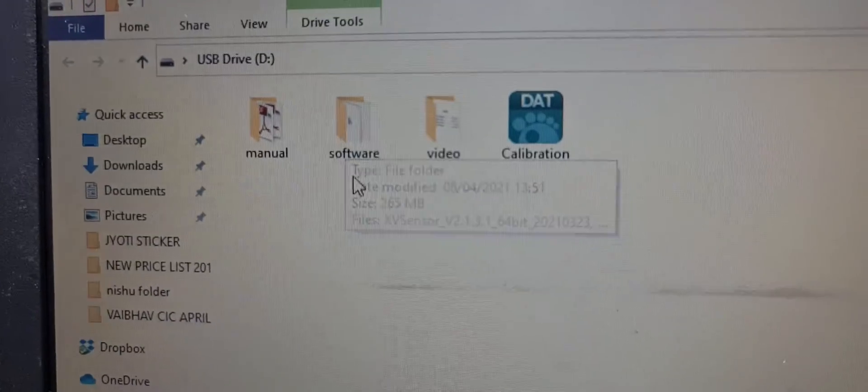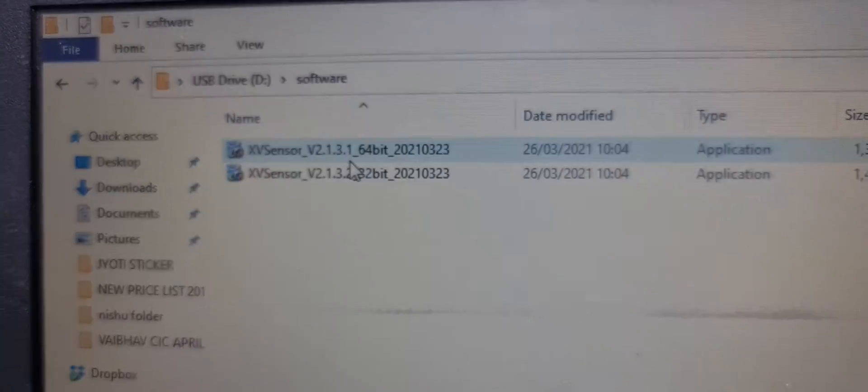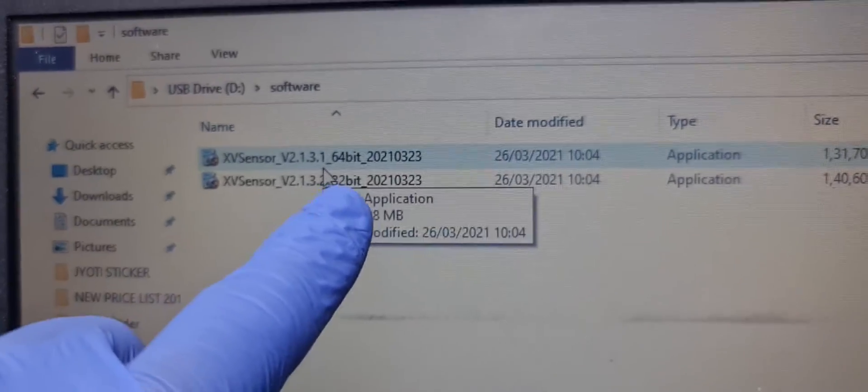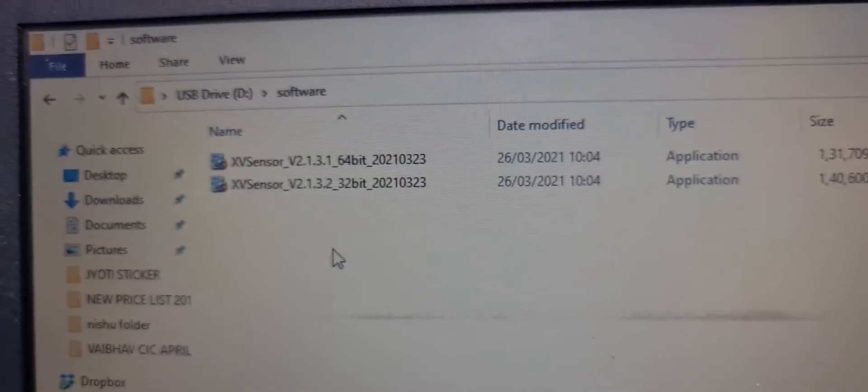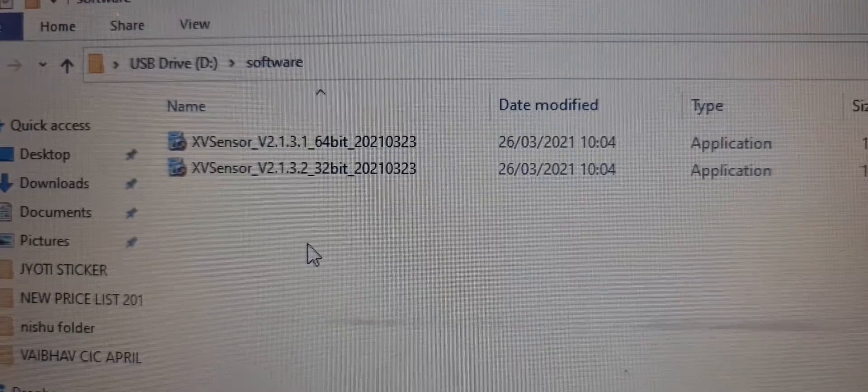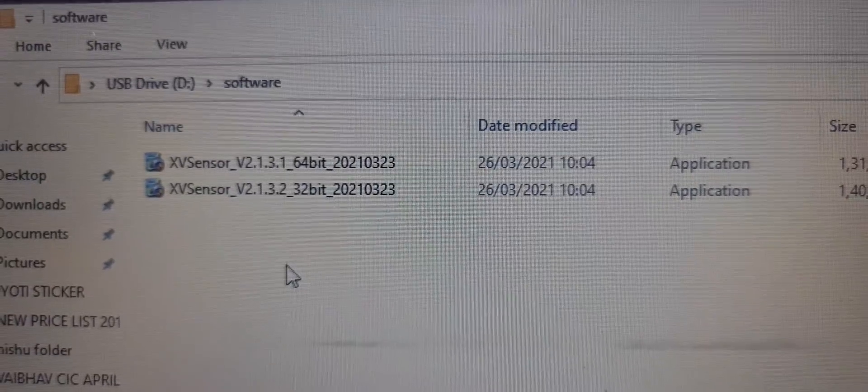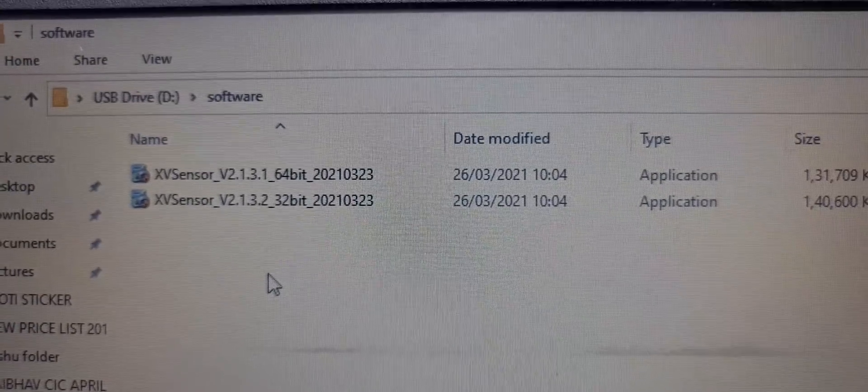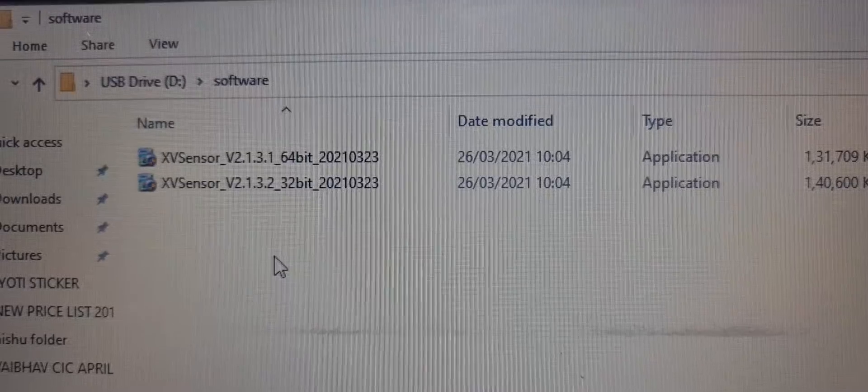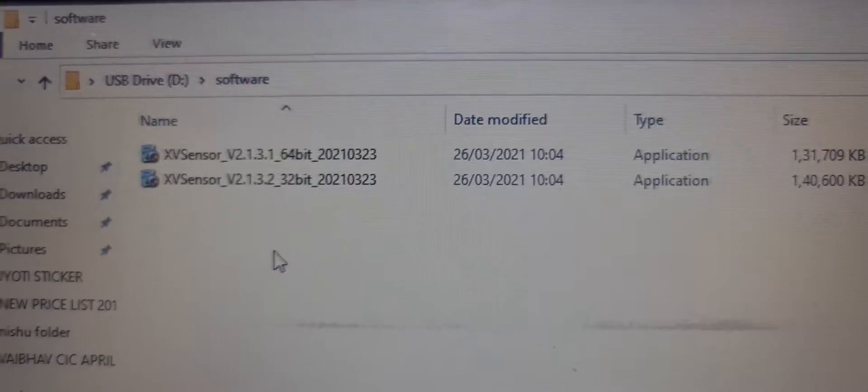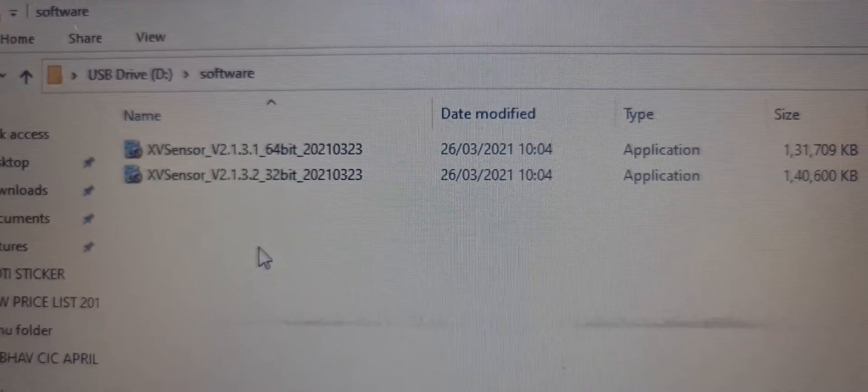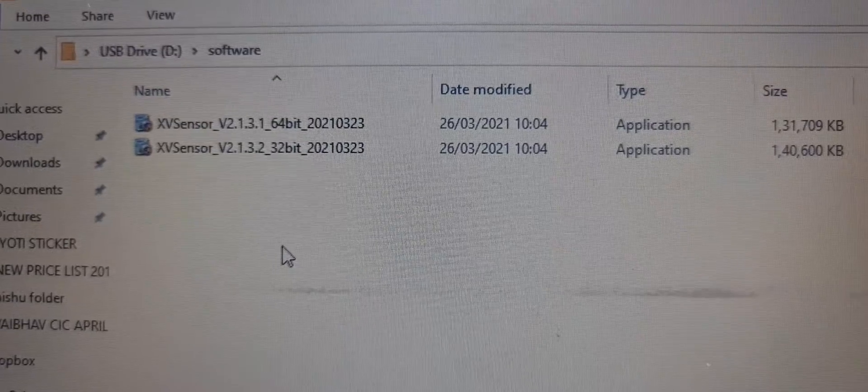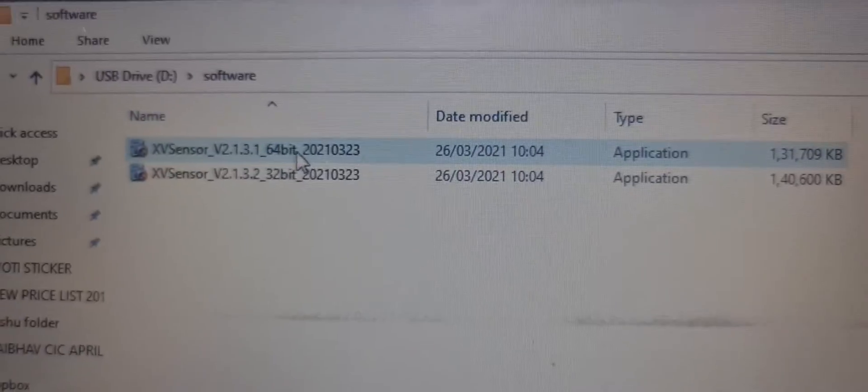Want to install software, double click software icon. There are two versions, 64 bit and 32 bit, so Windows are of two types. You have to check which Windows you have. You have to go to my computer, right click properties, there is written either your Windows is Windows 64 bit or 32 bit. According to that, like my computer have 64 bit Windows.